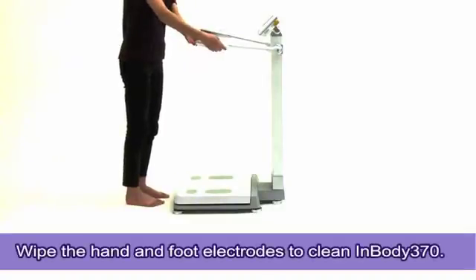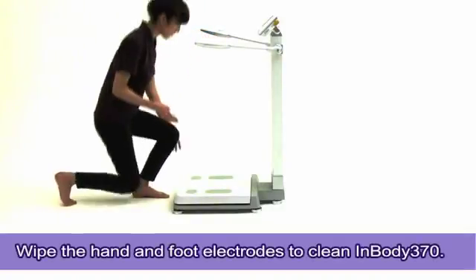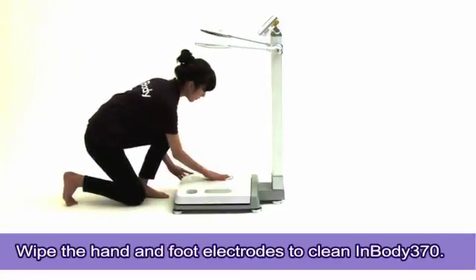Clean the InBody 370 using InBody tissues only. Other liquid cleaners may cause corrosion.